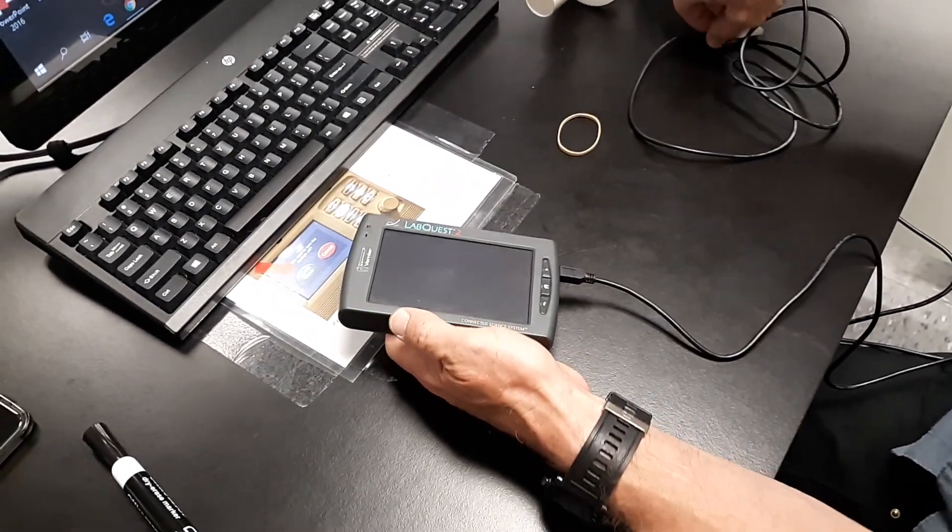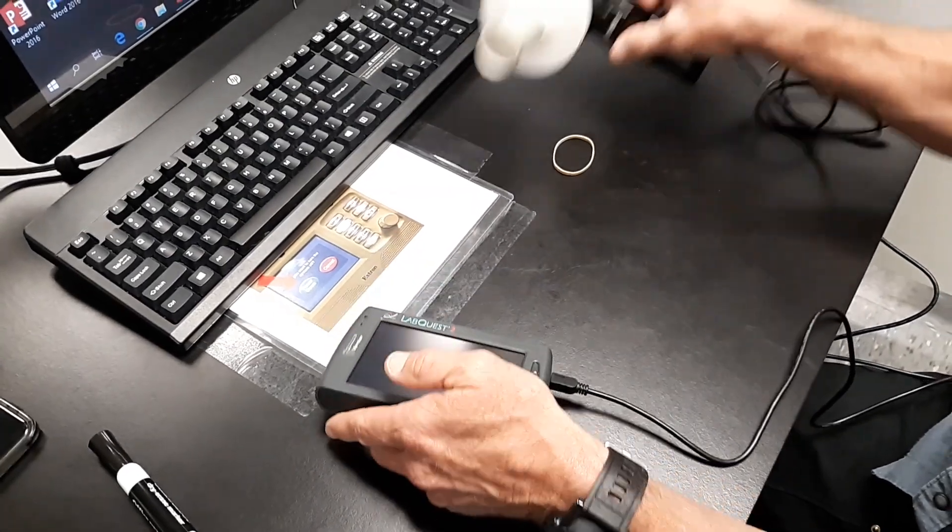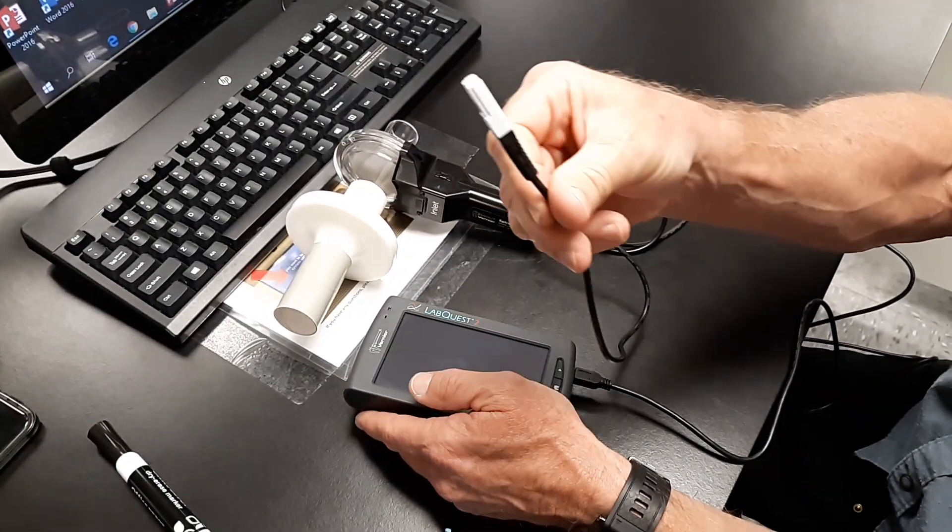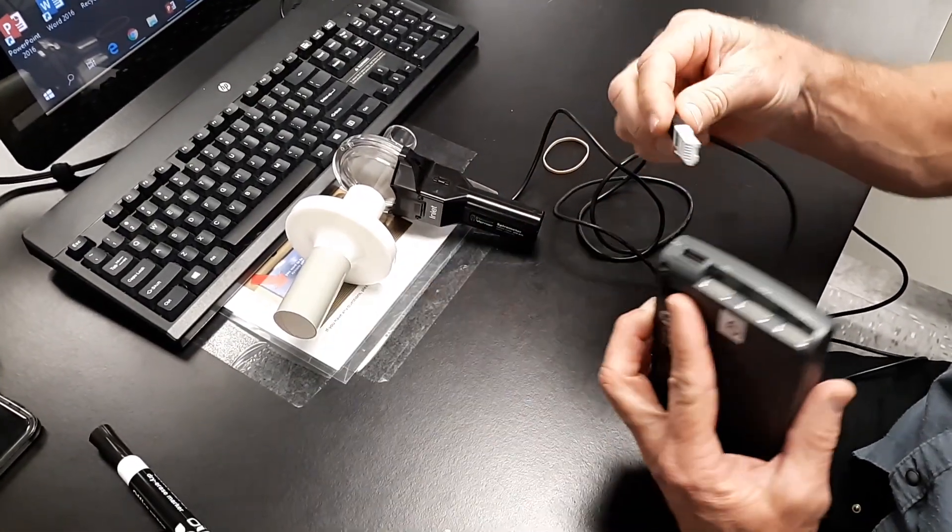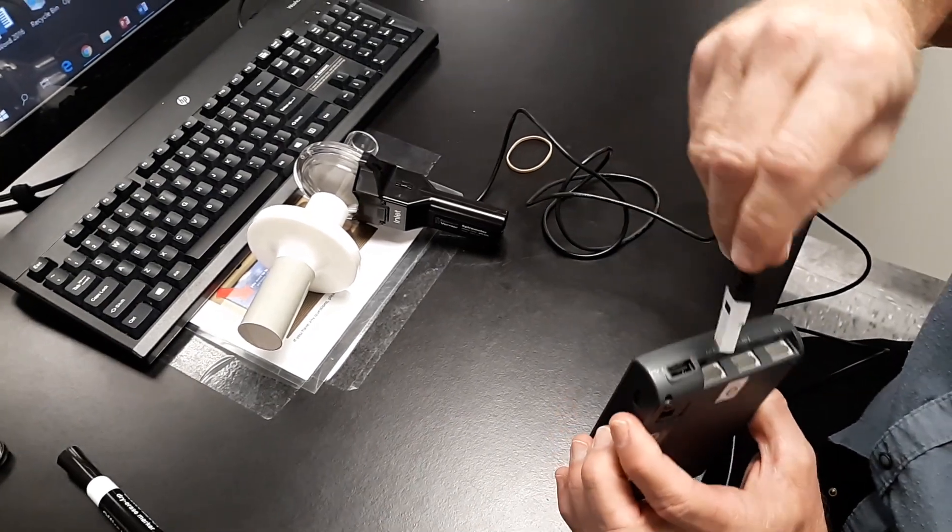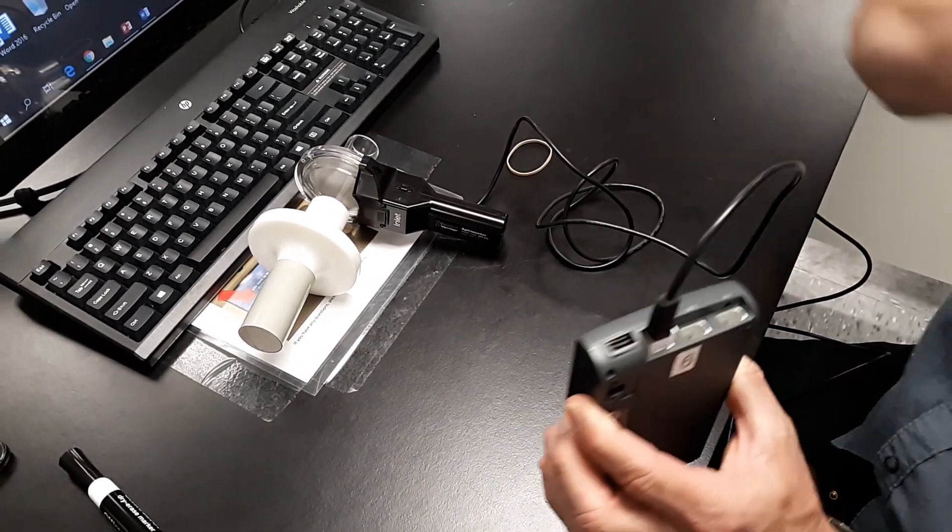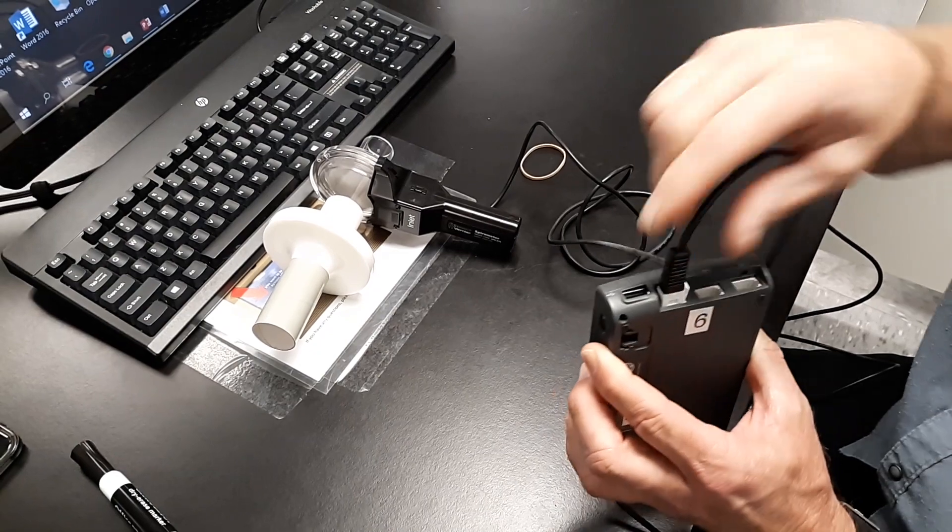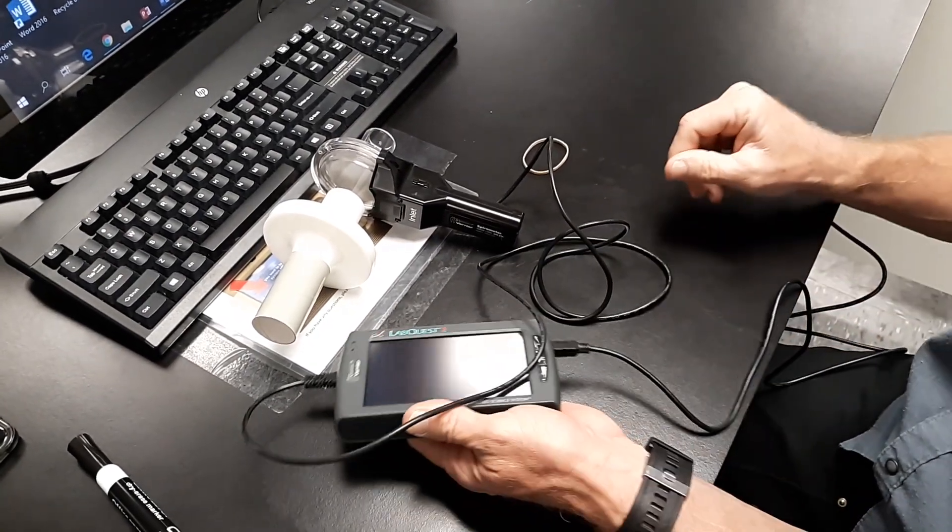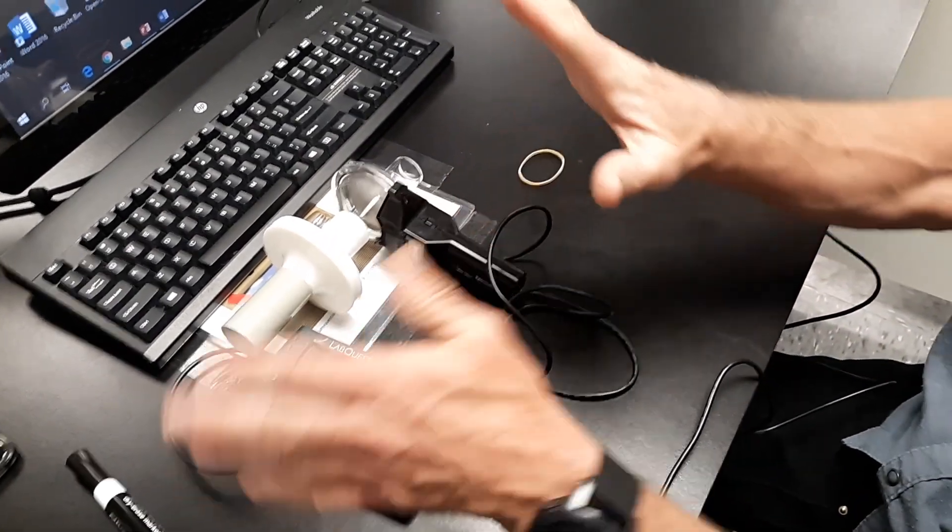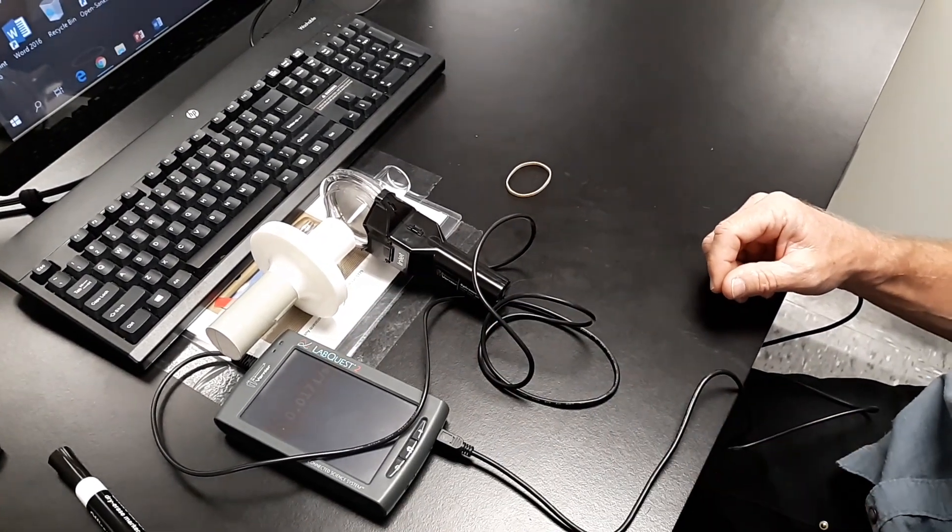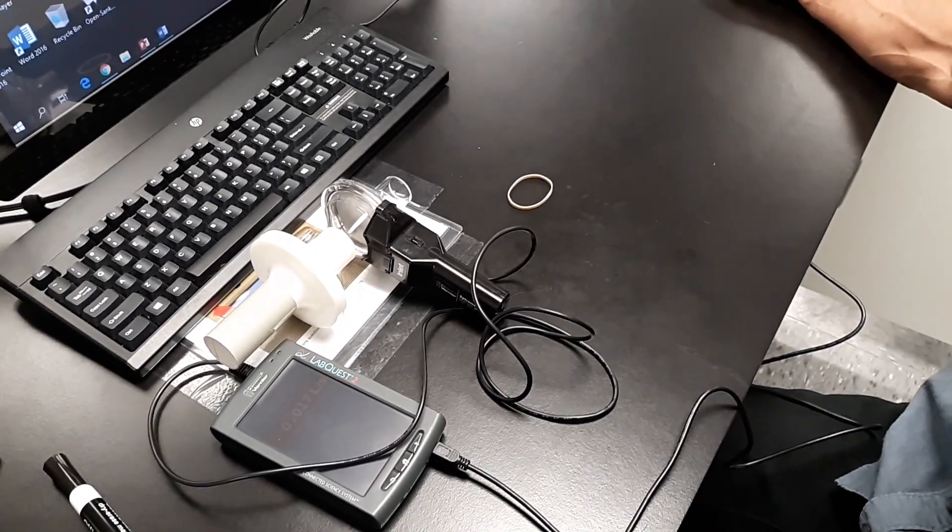Next thing you want to do is take your spirometer here. Got our plug. And we are going to plug it into, it doesn't matter which one you do, but there you go. Plug it into that. Get a good click and we're all set up. So as far as structure, excuse me, tools, we're all set up there.